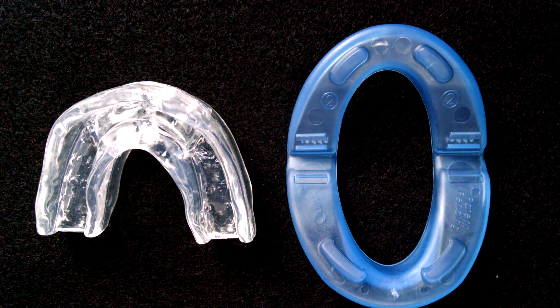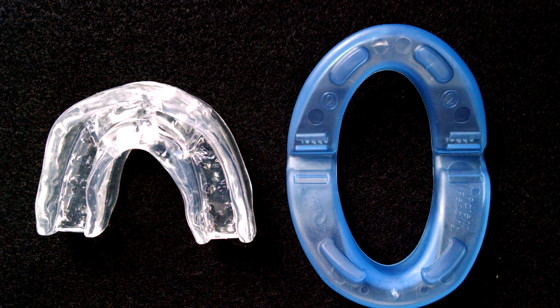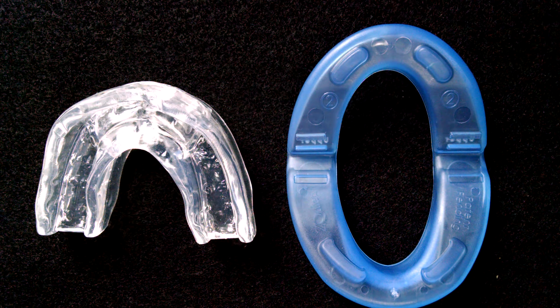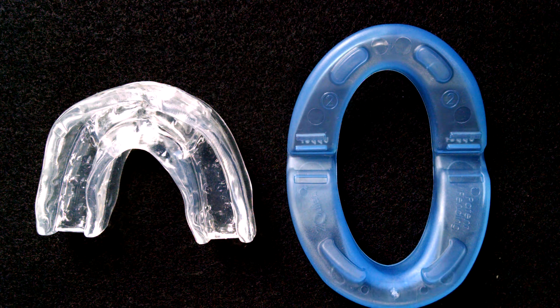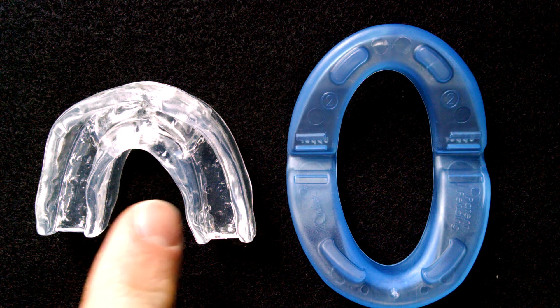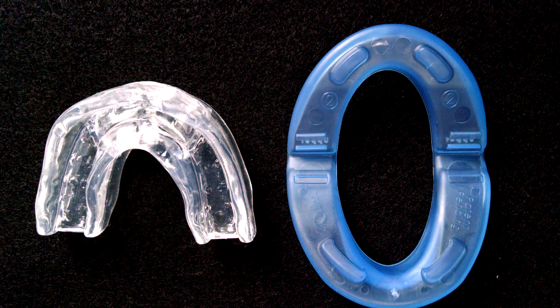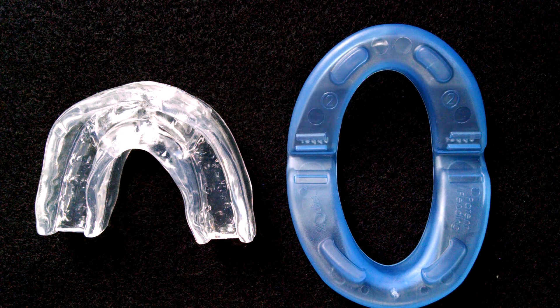Hey everyone, Bob Thomas here with SnoreMouthpieceGuide.com. Today I'm doing a comparison video between the Z-Quiet over here on the right and on the left we have the Rip Snore. These are two different mouthpieces obviously.